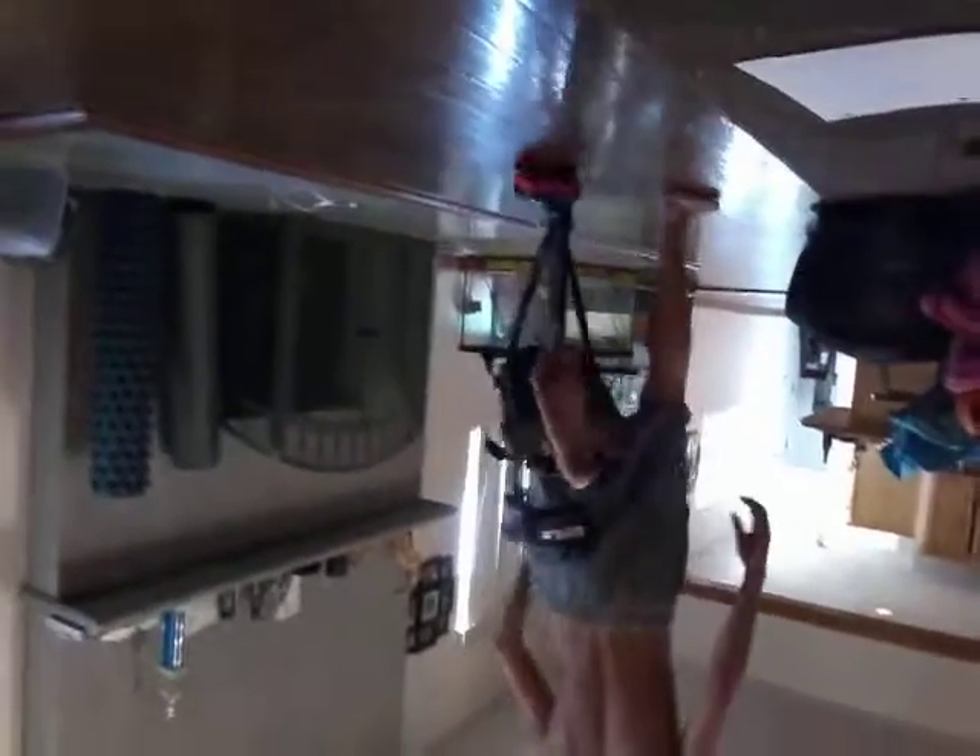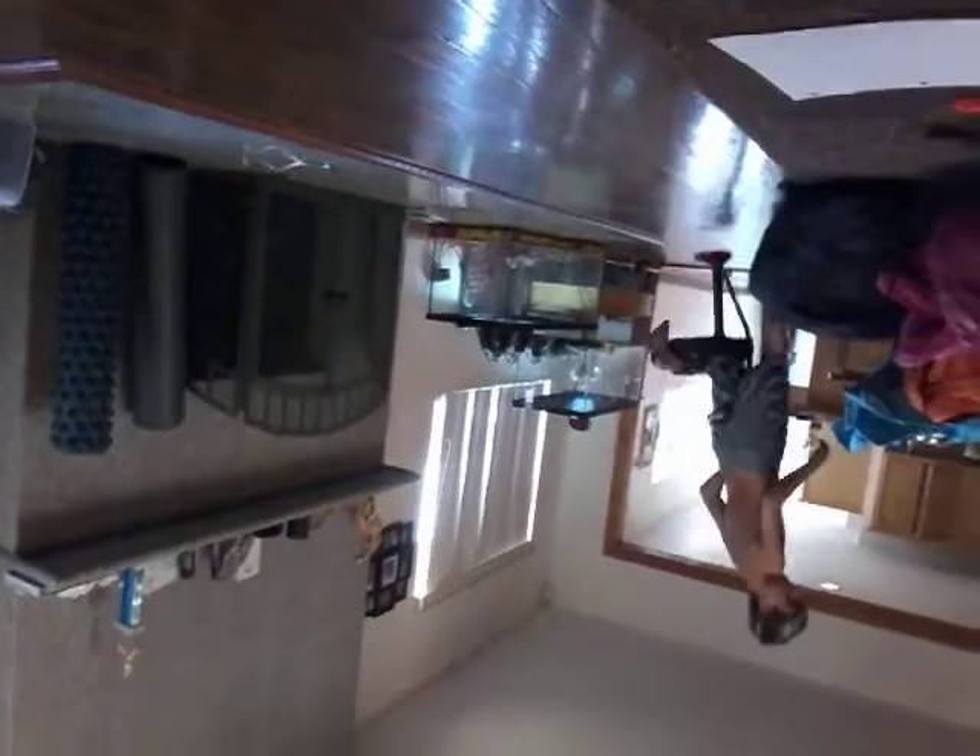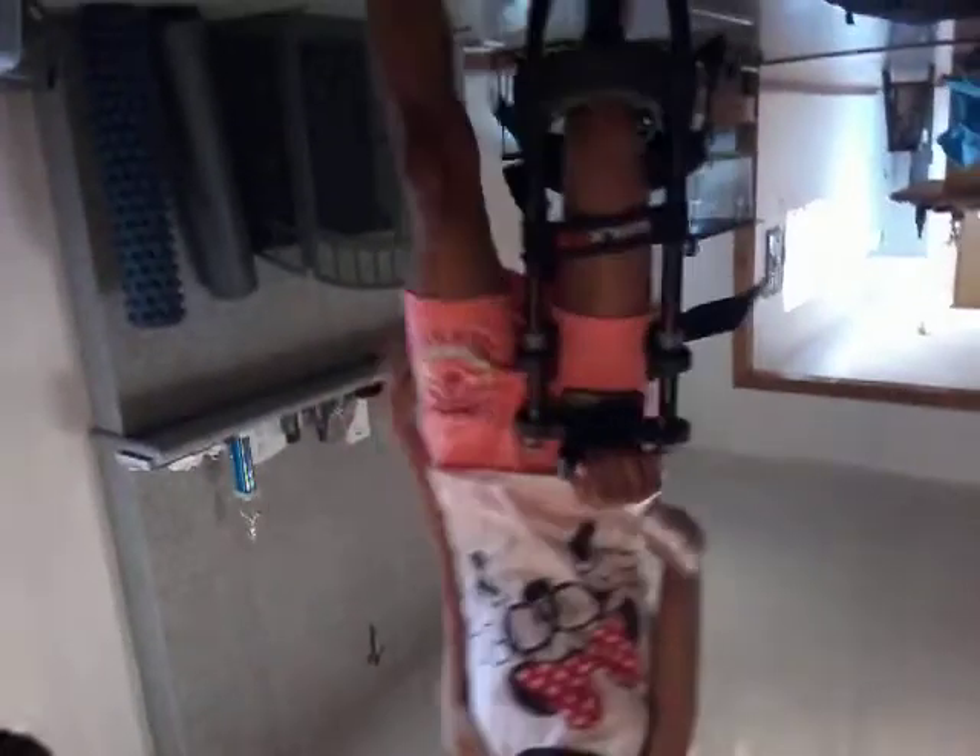You just kind of put it like that and you can walk with it. Here's the handle. Oh my gosh, let me try. Is it hard? Is it heavy? No, it's just weird to walk in it. So all that over there is our camping stuff because we're going camping tomorrow.